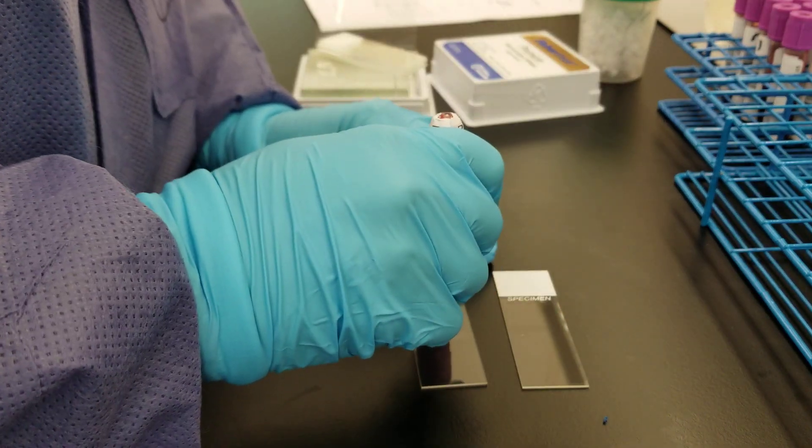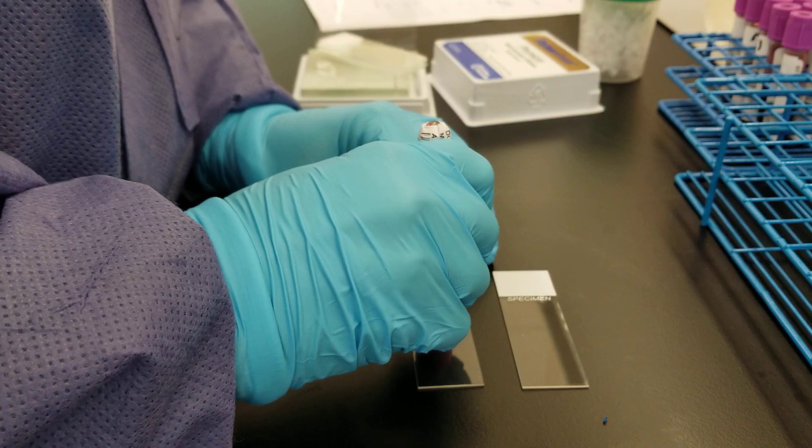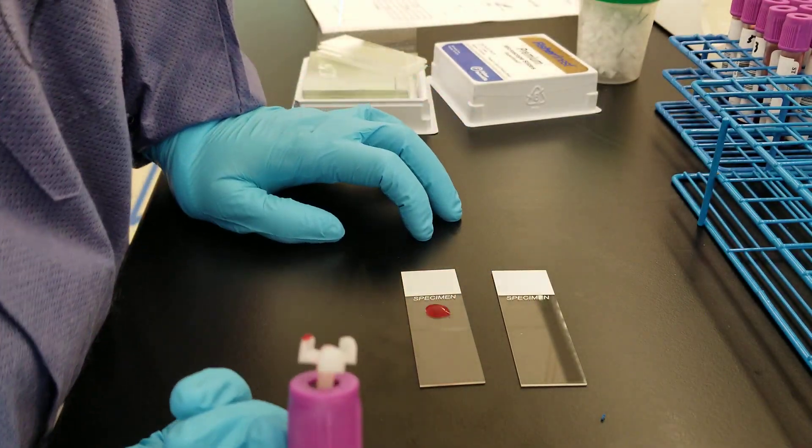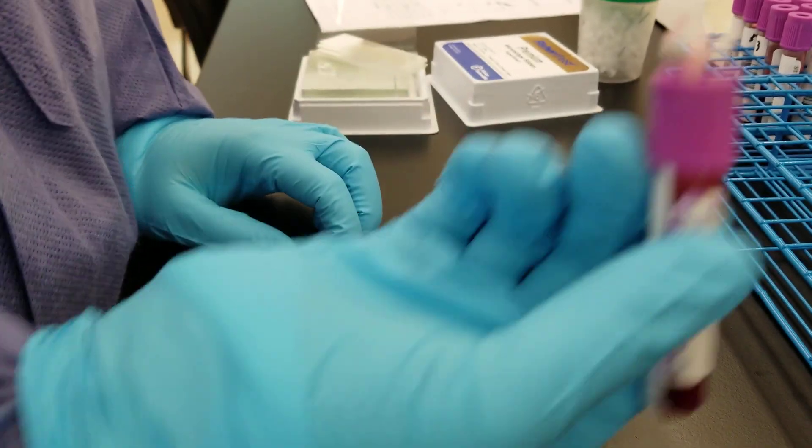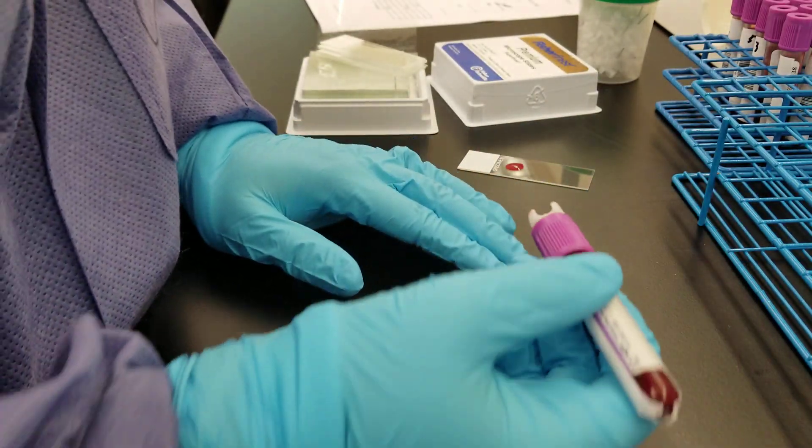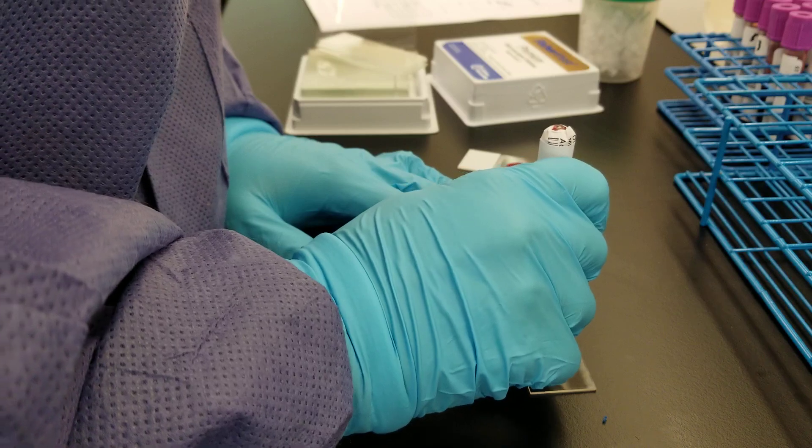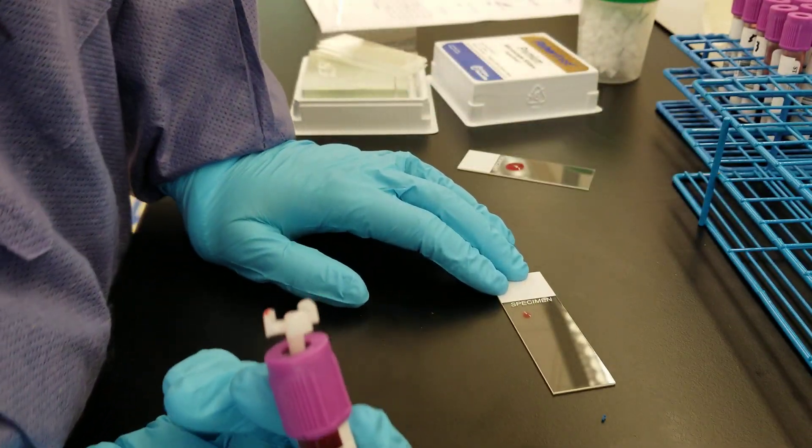So I'm going to put a drop at the front there. That's way too big. Okay, so that's not a good one to use. We're not going to do that. That's what's a pain about these is they can be super duper big. So you're going to do a smaller, that's too small.